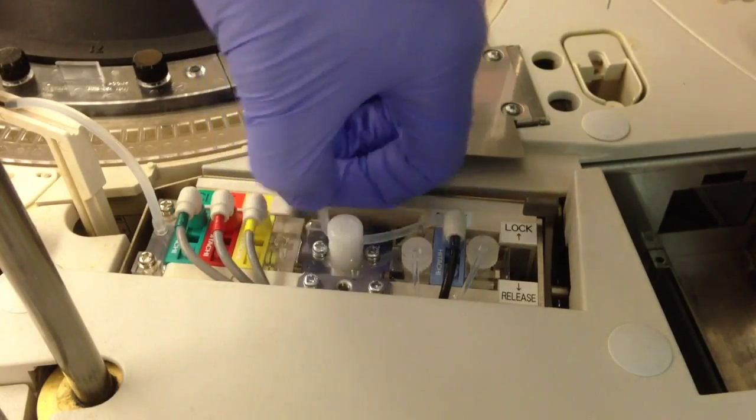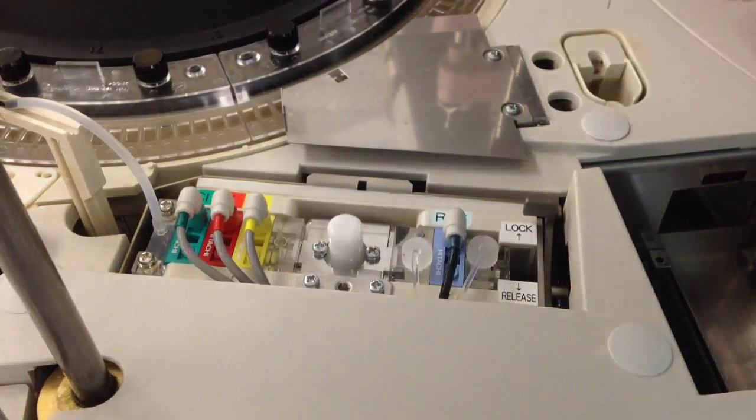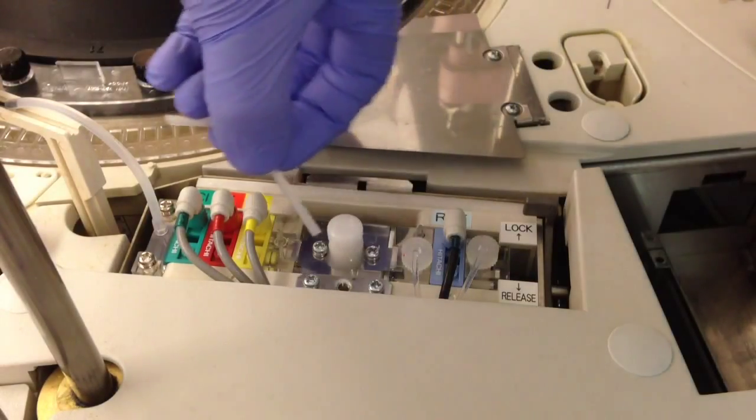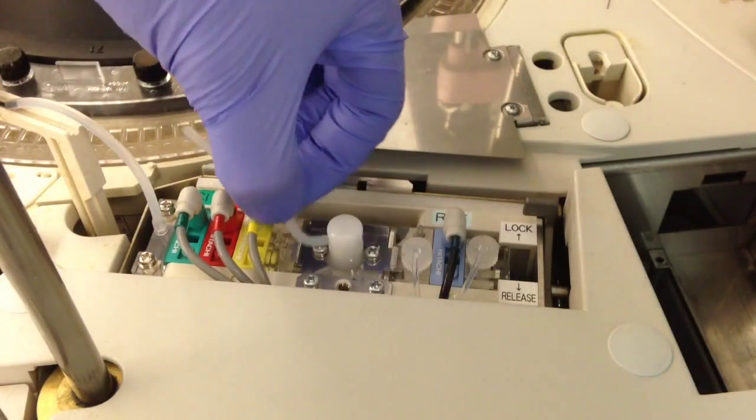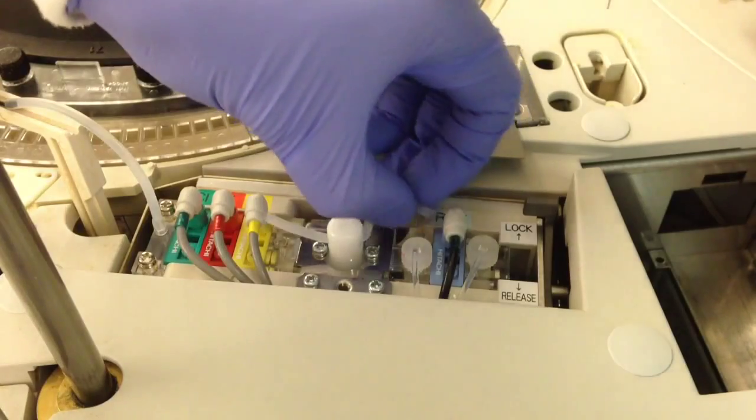Gently disconnect it and slide it out, then grab your fresh tubing and insert it. Now we're going to reconnect it.